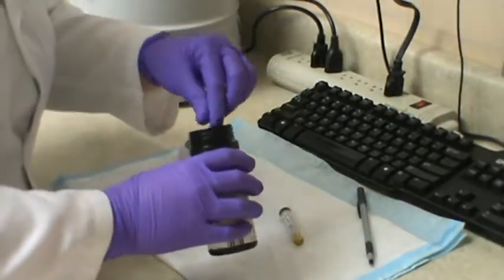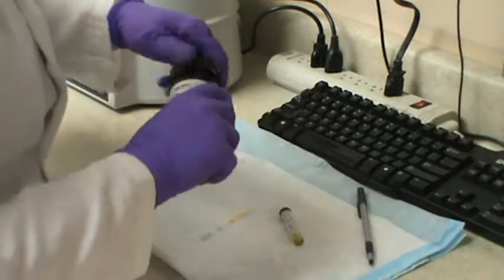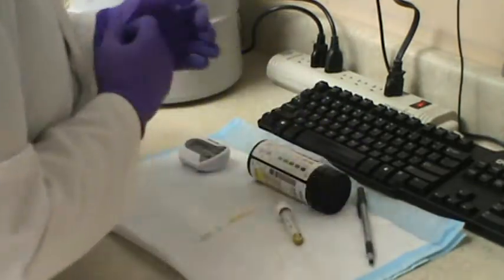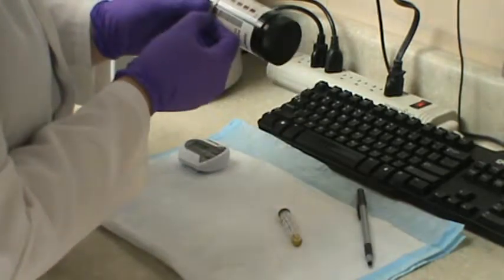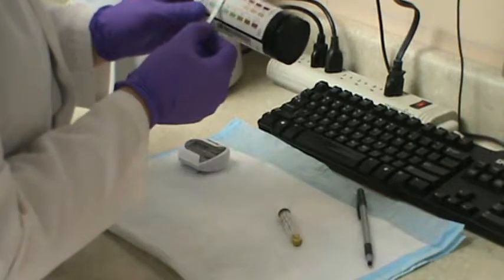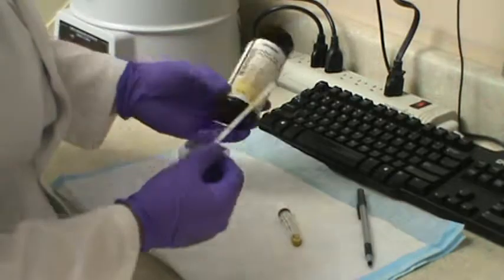So I'm just going to take out one of these strips. When we line it up, we want to do the bottom first. This strip all the way at the bottom, you line up with your ID band, and then each strip is going to coincide with the way it is up on the actual bottle itself.